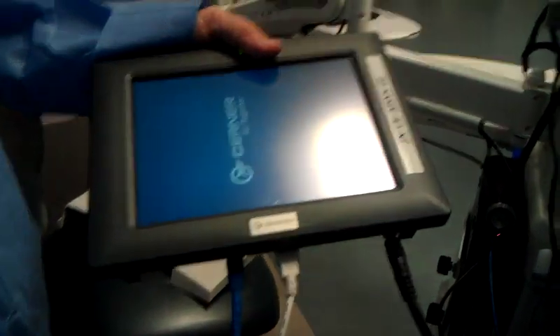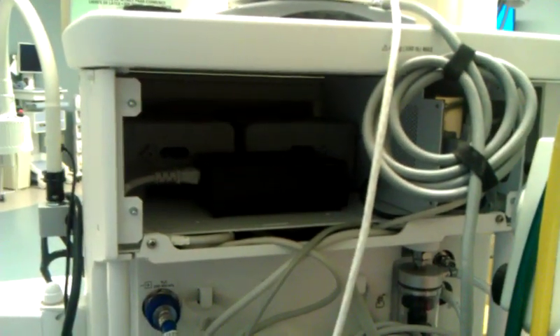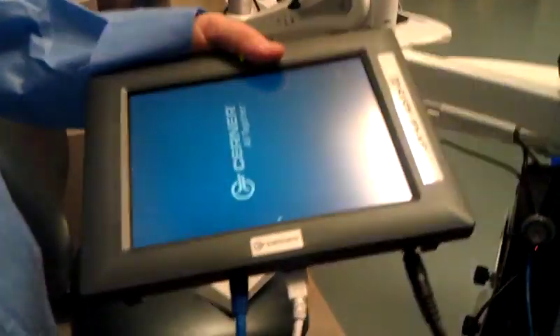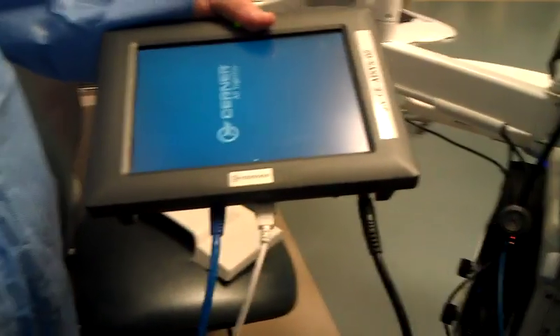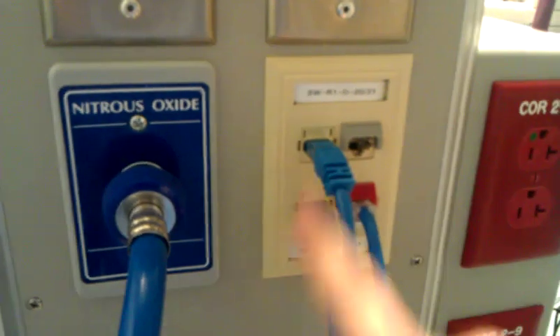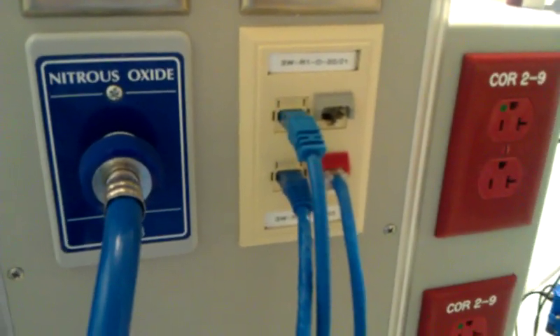The connectivity engine itself is going to be stored in the back of the machine — there's a cabinet there. This is the connectivity engine. The other end of the USB is here, this is the network cable, and this is the power. You want to make sure those are secure as well. The network cables for both the PC and the connectivity engine are here. They are interchangeable, so as long as they're secure, we should be good.